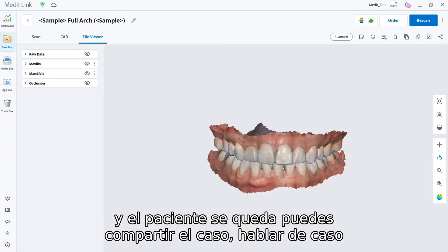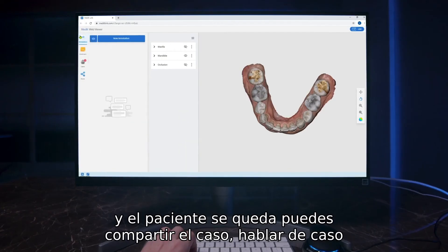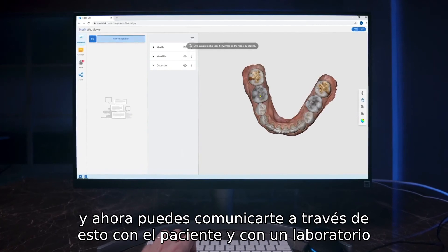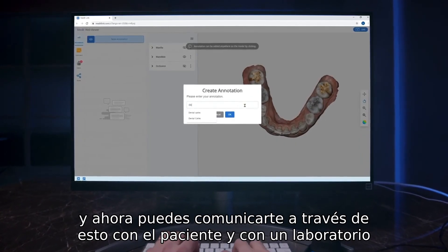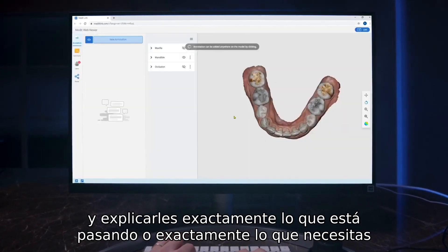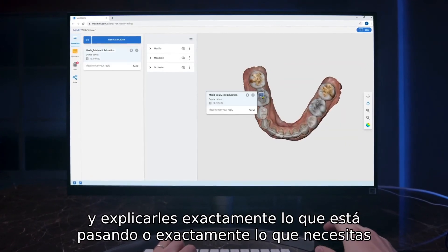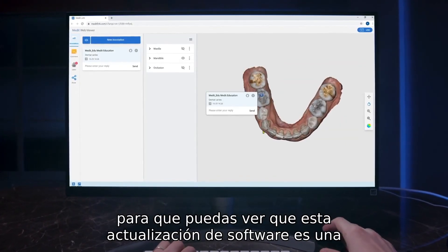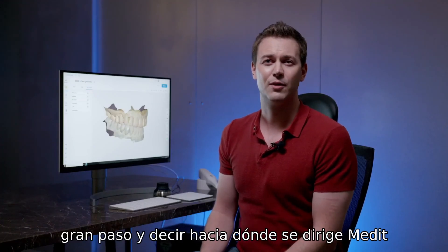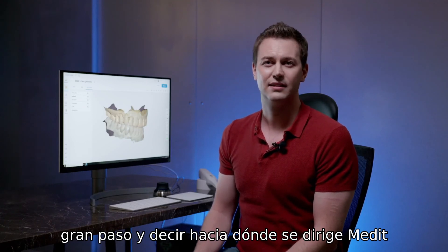After you've done that and the patient has left, you can share the case to Case Talk. You can communicate through this with the patient and with the lab, and explain to them exactly what's going on or exactly what you need. This software update is a huge step forward and shows where Medit is heading.